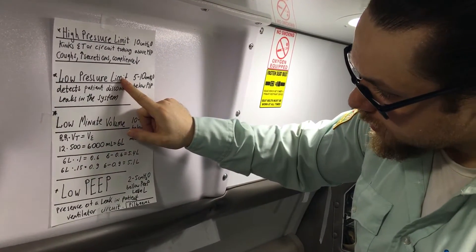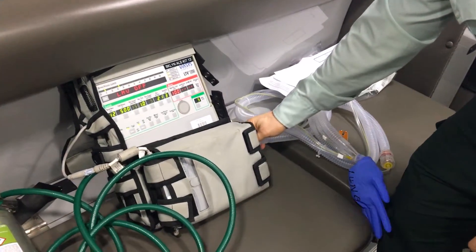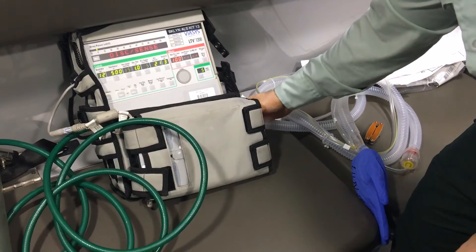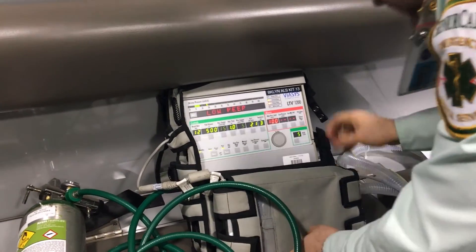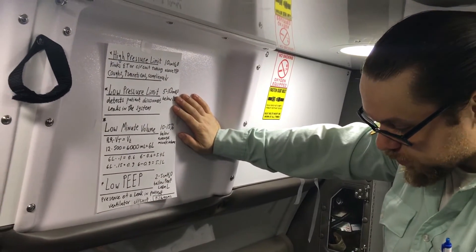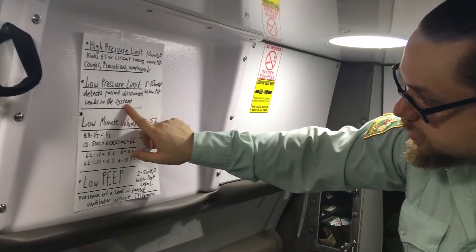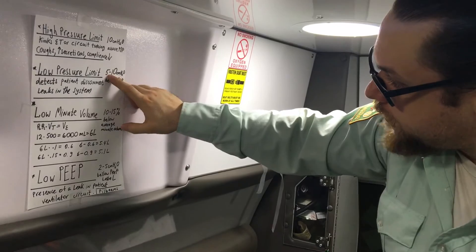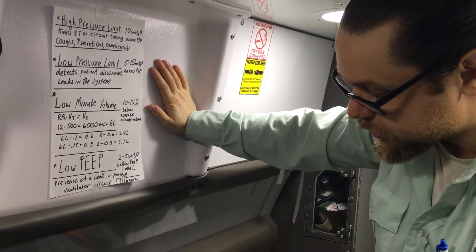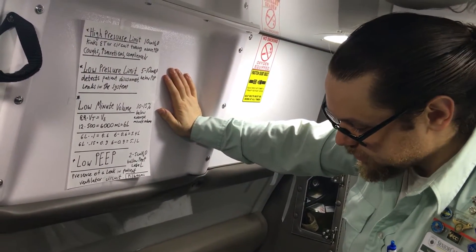Low pressure limit tells us if there's a disconnect or there's a leak in the system. A disconnect can be, for example, if a tube is pulled out as you're loading the patient. It's sensing it and you'll see this alarm. This can also happen if the patient has an endotracheal tube and the endotracheal tube comes out — you should also be looking at your end-tidal CO₂ for that. So any disconnect or any leak in the system triggers the low pressure limit, and we set this 5 to 10 centimeters of water pressure below the peak inspiratory pressure. In the case we showed before, if it was 28, you will set it at 18 if it's 10 below.